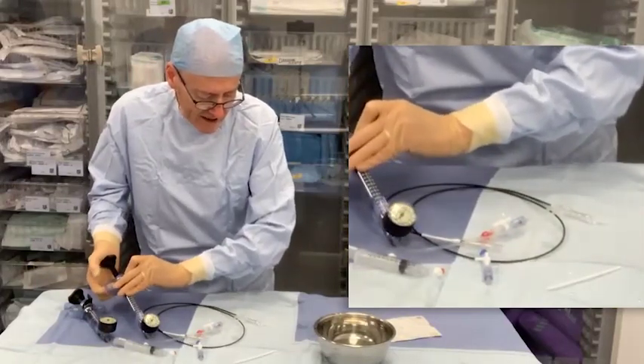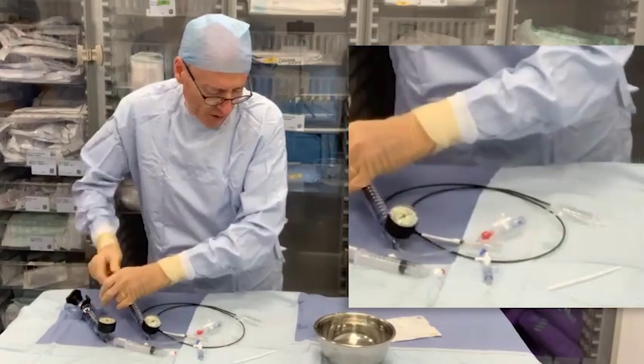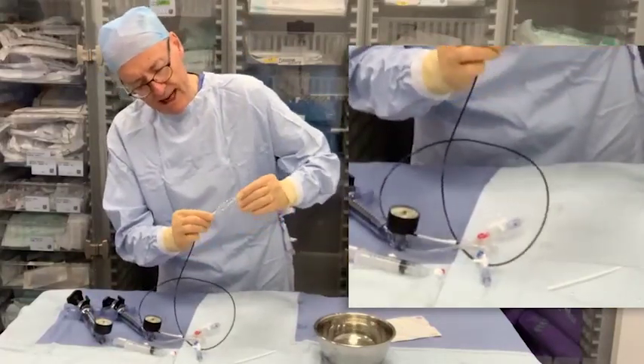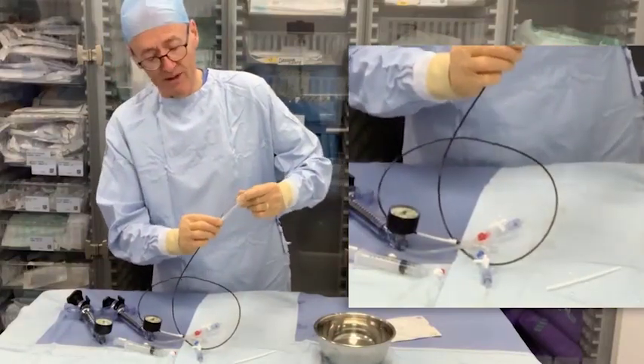As we go up with the outer balloon, you can see it doesn't fishtail into the vessel wall but goes up fairly sequentially. So we can put the pressure up and the balloon manages it well with a nice deployment. If we had different colored fluids you'd be able to see the inner balloon as well.